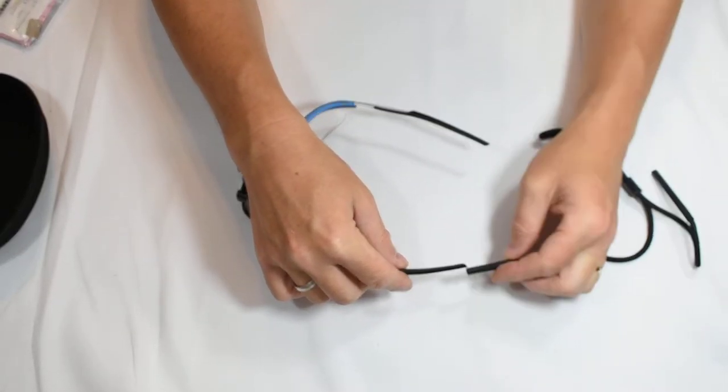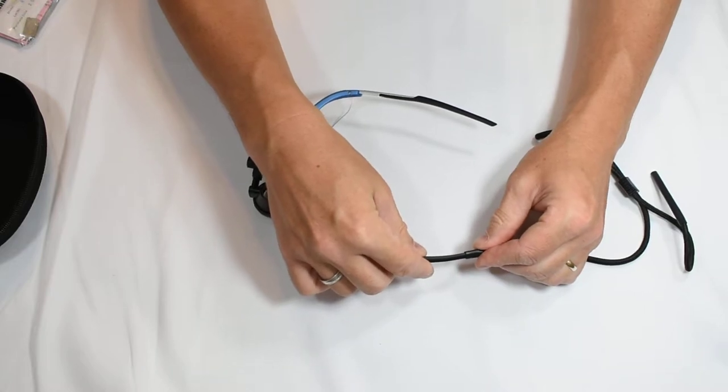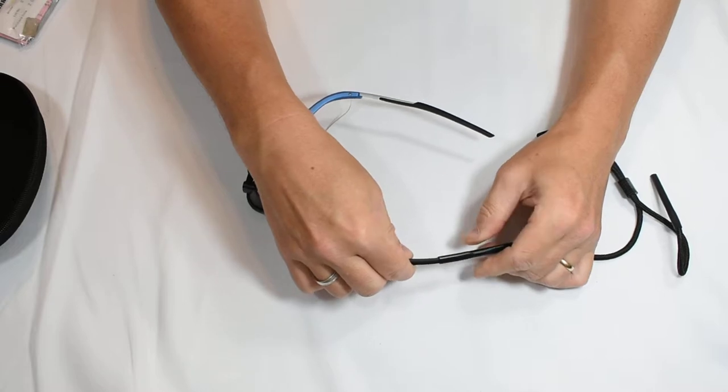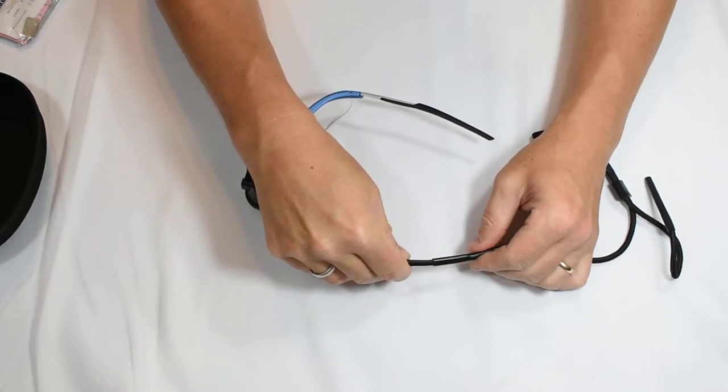To install the head strap all you need to do is just slide this on like so and keep with a steady pressure, just a little pushing.